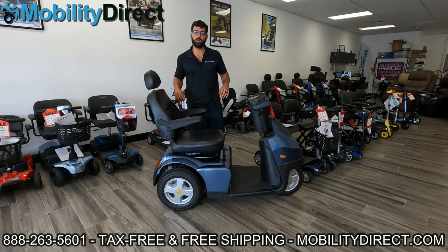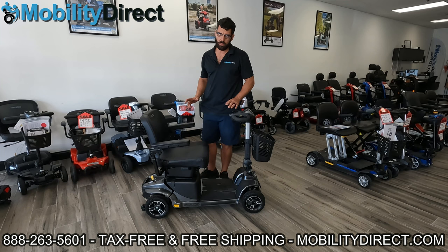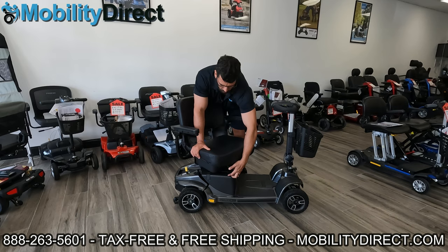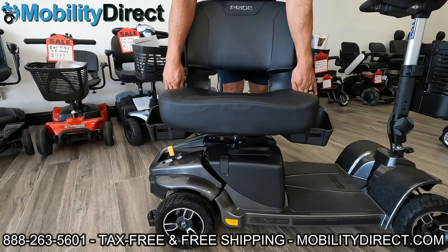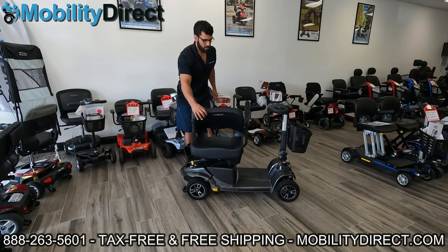Now we're going to go over a few other examples of scooters to show you that most of them work the same way. I have another model here — this is a Pride Mobility Revo 2.0. Some models made by Pride will have a seat system with two under-seat storage containers. The rotation lever is right here in the middle, and it locks into place just like the other model. The key thing I'm trying to show you is that these under-seat storage containers need to be opened outwards. If they're not open, the seat will not come off and will not reattach properly.